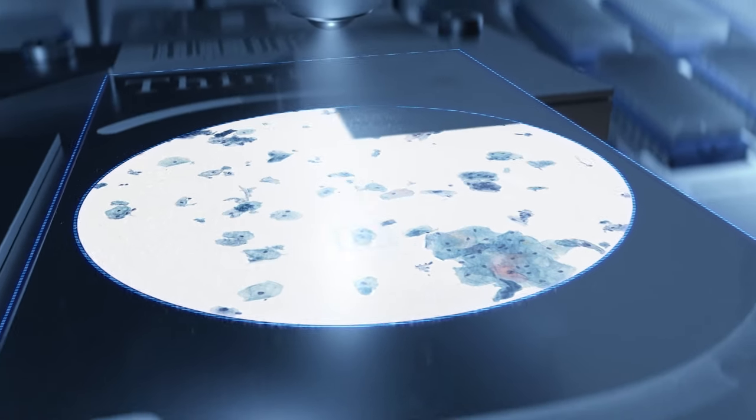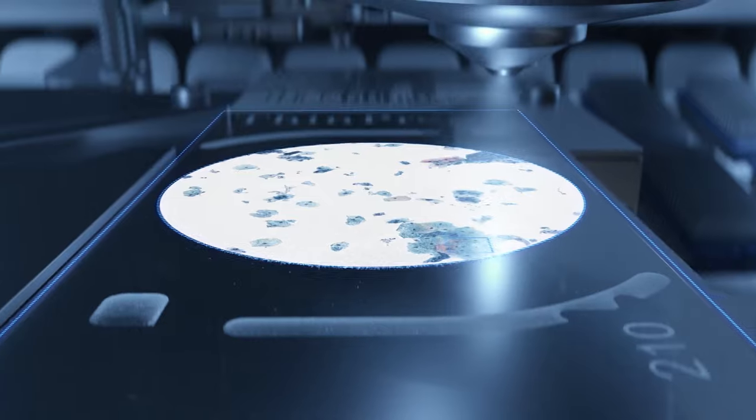the entire slide is reviewed by an image analysis algorithm to generate a gallery of diagnostically relevant cells.